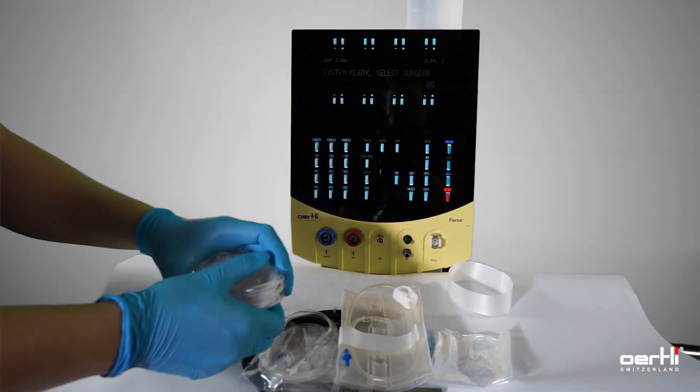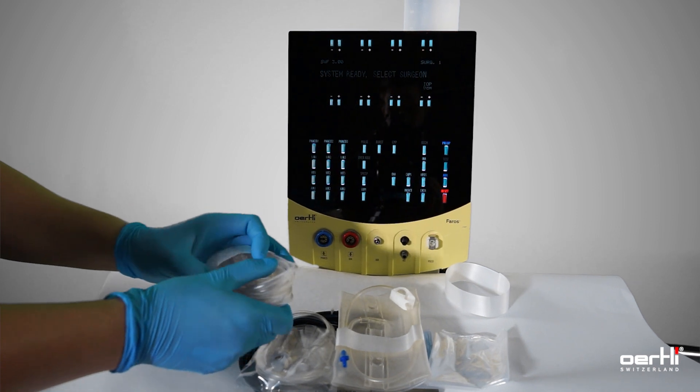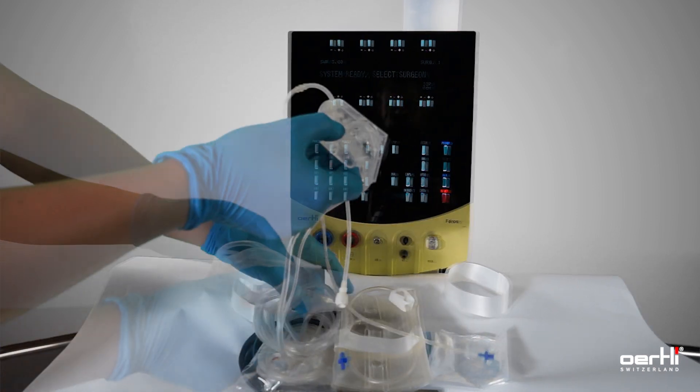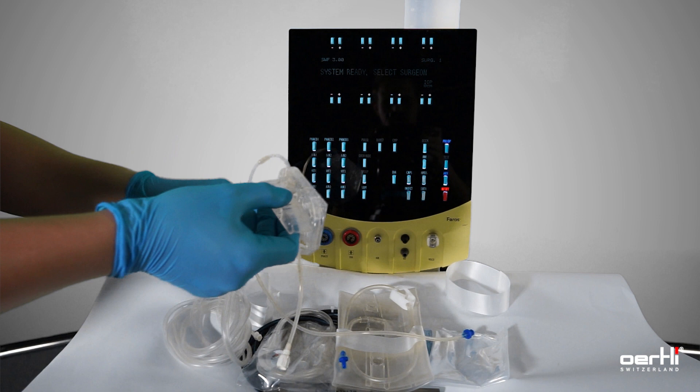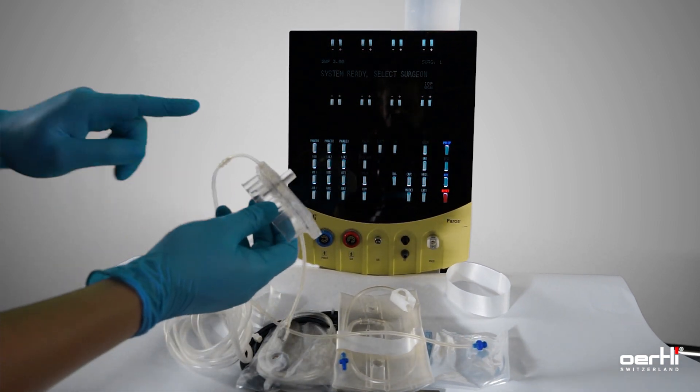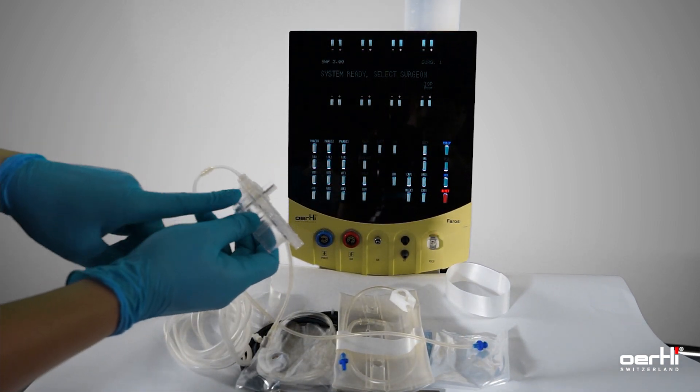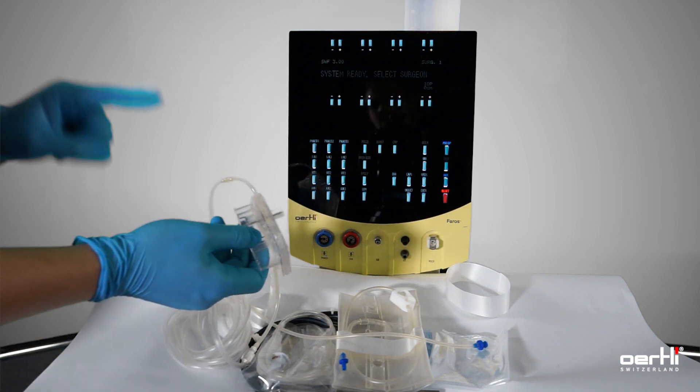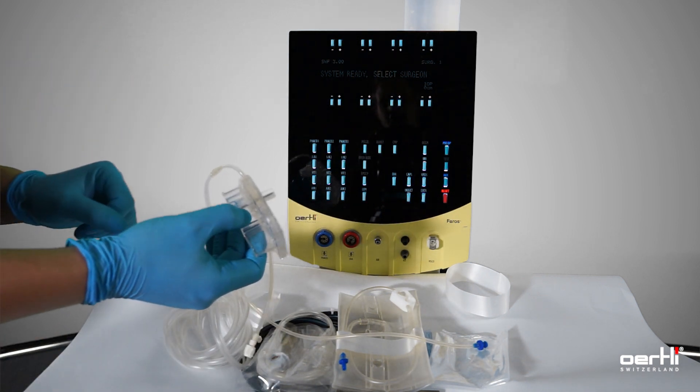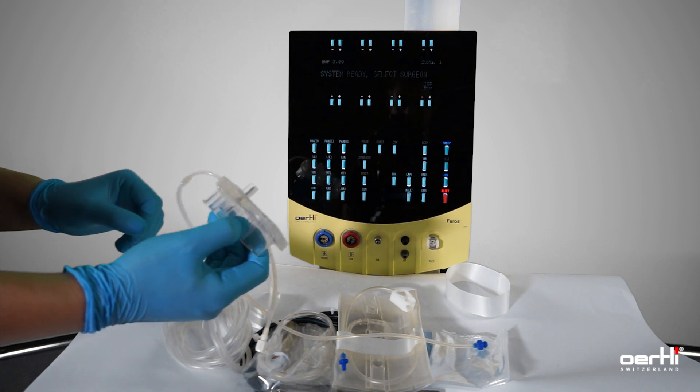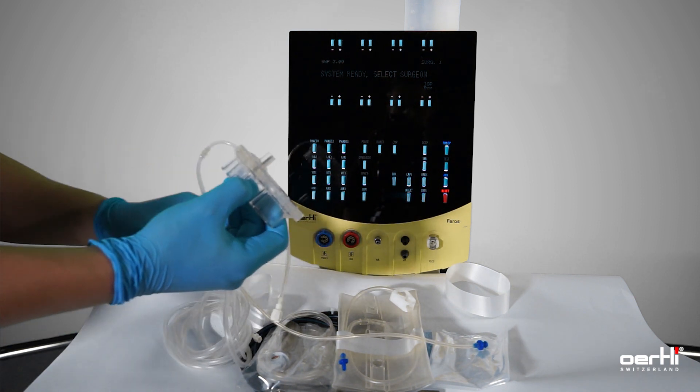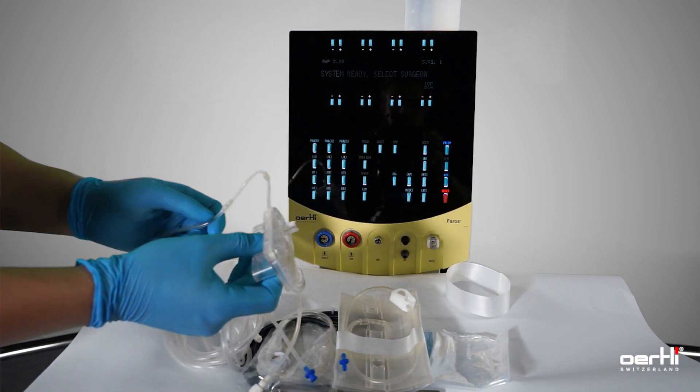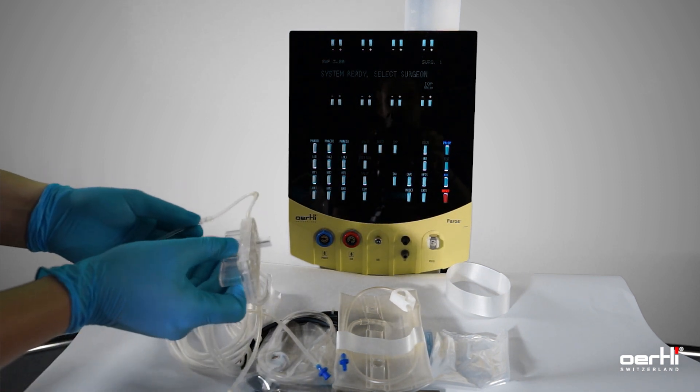We go ahead with the cassette, remove the wrap. Now you have two options: either you hand over the cassette to your jumper's hand and ask him friendly to install the cassette system, or you can do it by yourself by following a couple of rules to prevent losing your sterile condition.